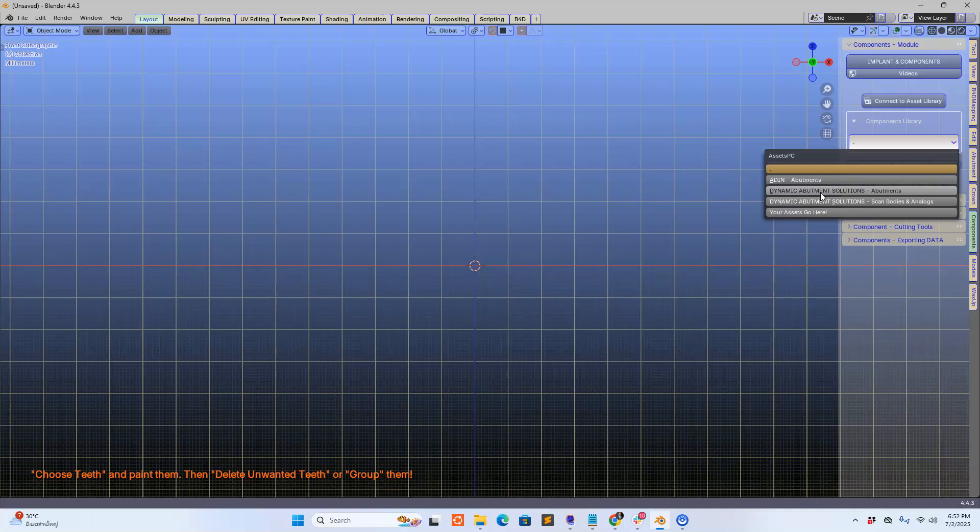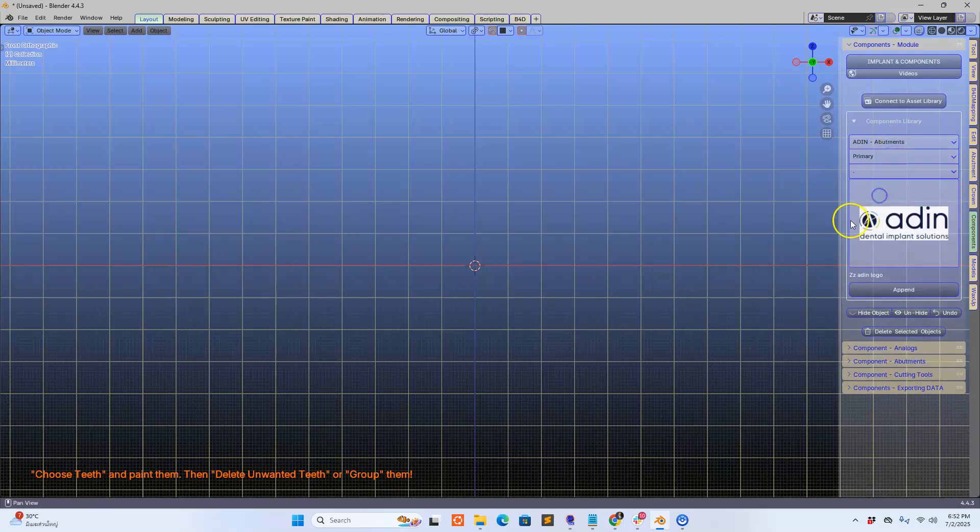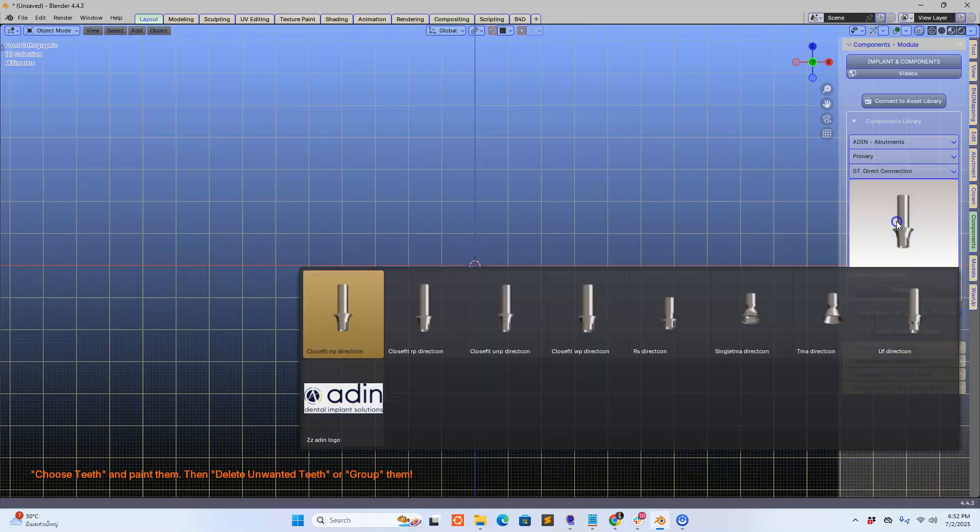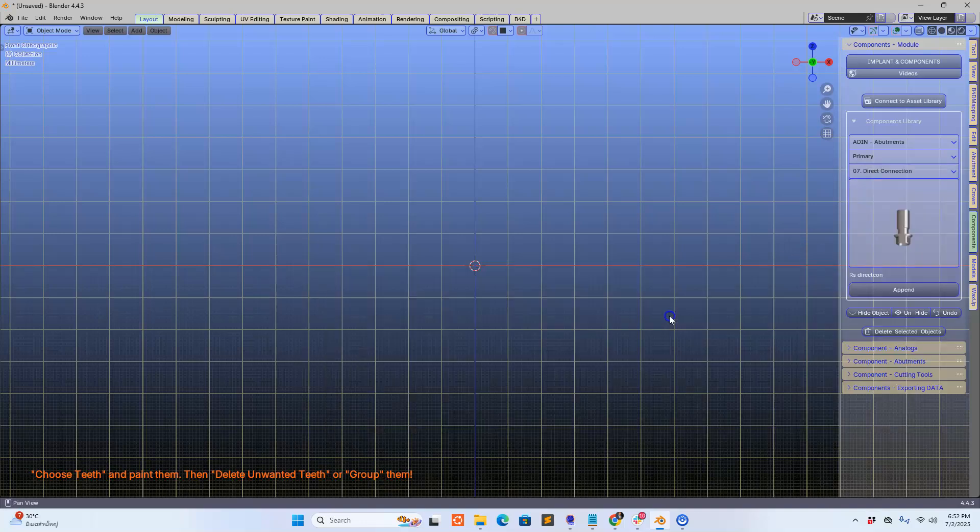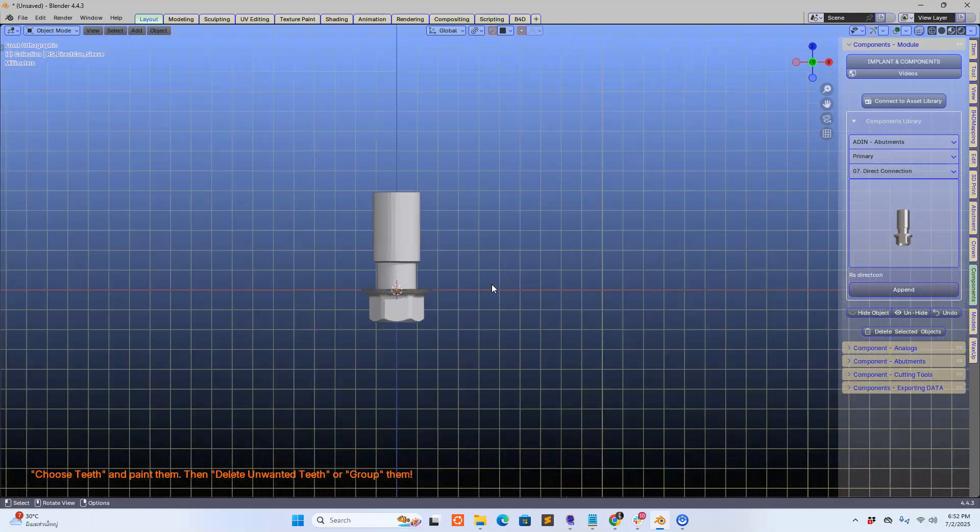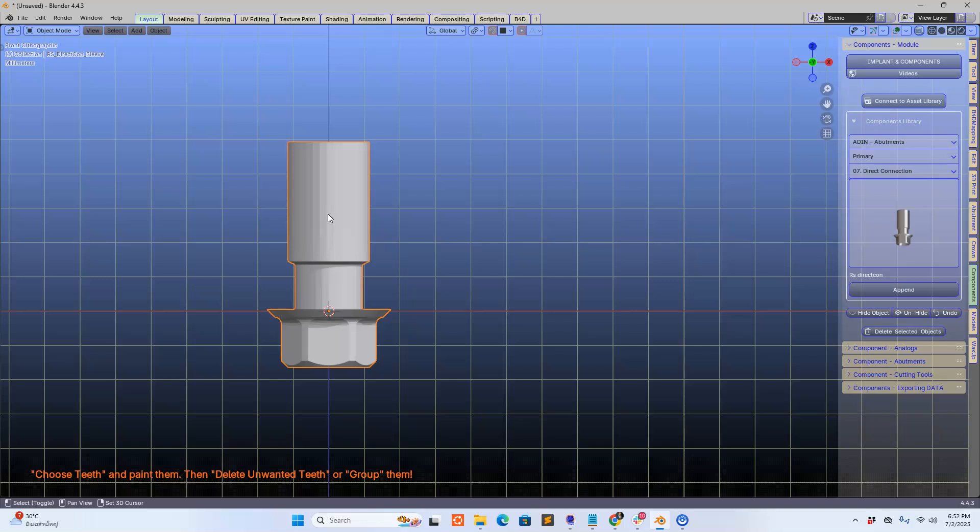In this one I'm going to stress it as much as I can. I'm going to use the abutment module and let's see what we can do. For this video I'm going to be choosing a direct connection and bring it into the scene. Now usually we don't need them to be this long, so make sure that the screw fits because I'm going to angle that extremely.